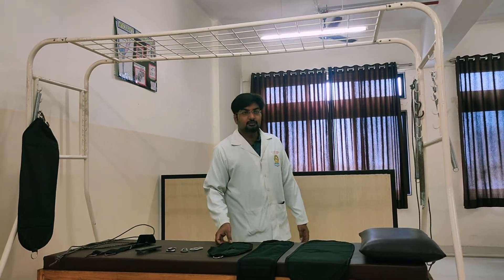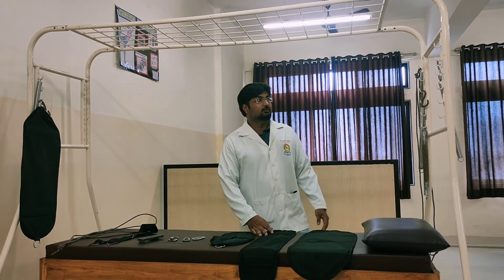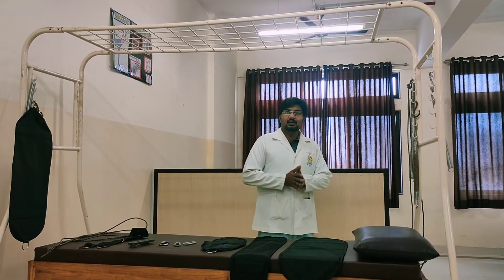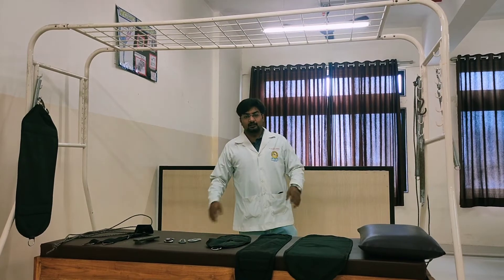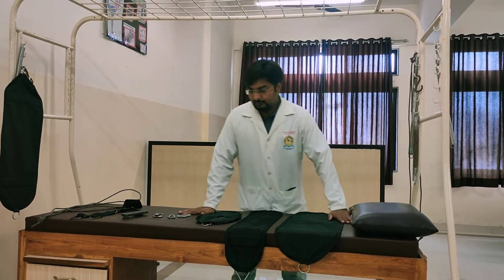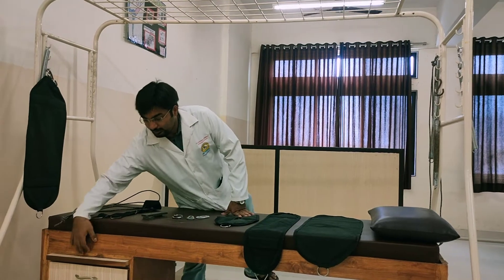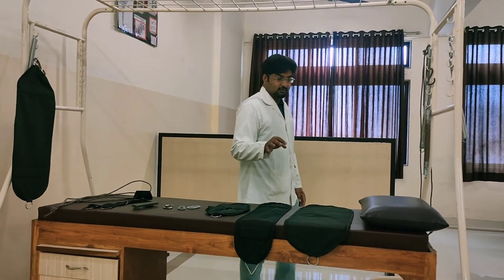Today I am going to talk about suspension therapy. This is the suspension unit in total. The usual dimensions should be 2 meters in width, 2 meters in height, and 2 meters in length. This is a modified one — inside the suspension unit there is a drawer and other things to keep all the contents regarding the suspension.